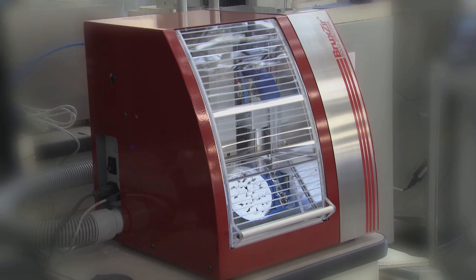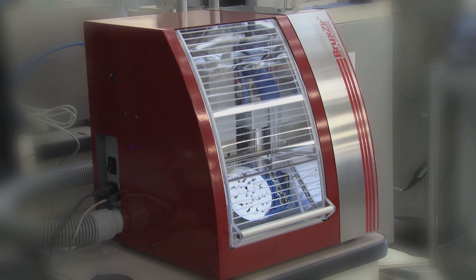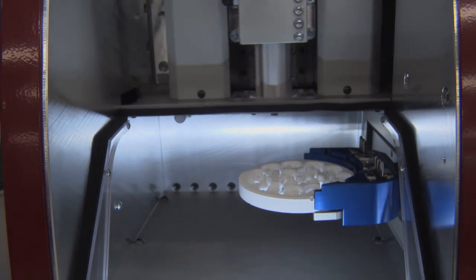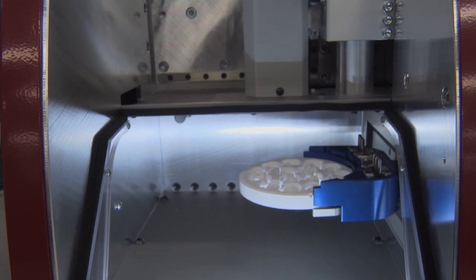Most organic shapes encountered in the lab, like crowns, bridges, inlays, onlays, and copings, can be successfully milled with 4-axis.